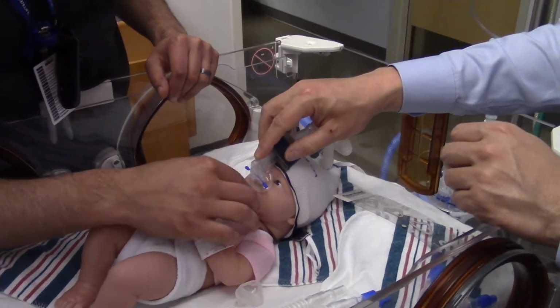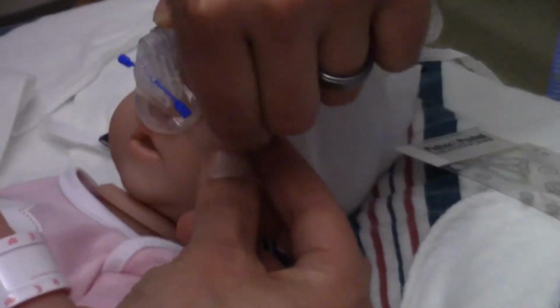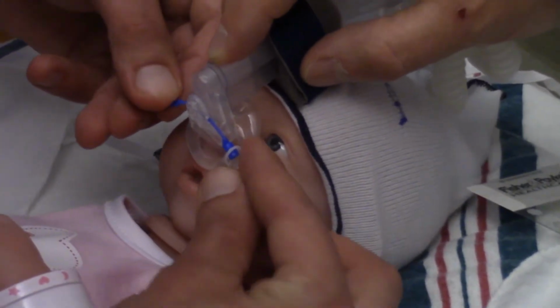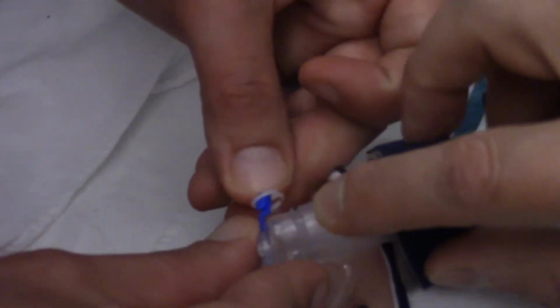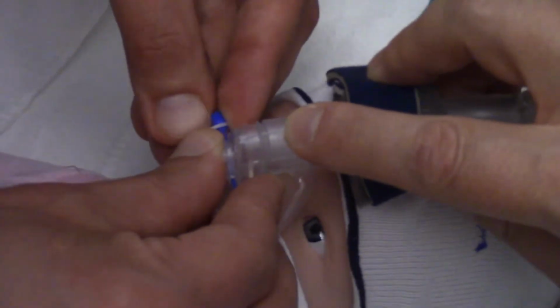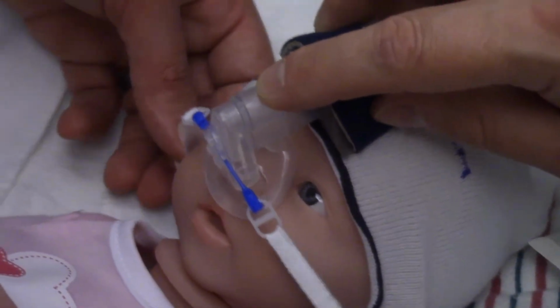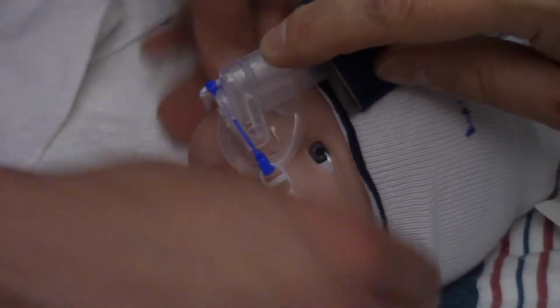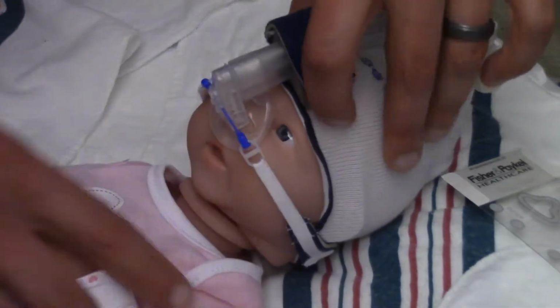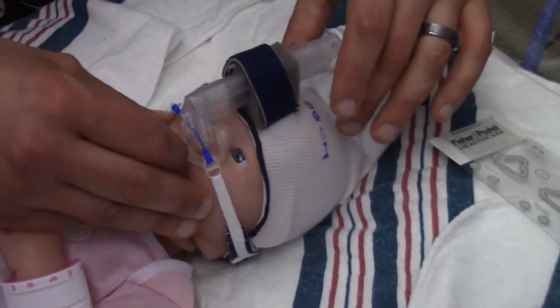All right. So again, we have our mask chosen. We've got a good fit. We come over, and this baby is a very rigid plastic, so it's not going to act like a normal human. But you guys get the gist. So we have the mask secure. We go to tighten, little by little, increment by increment, equally on each side, and then we let go, and we can see that the baby is still here.